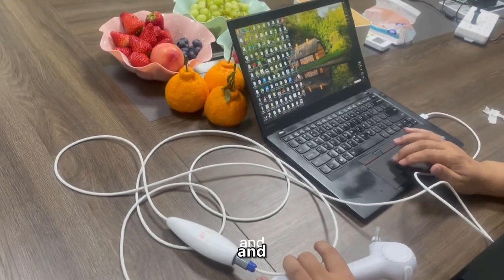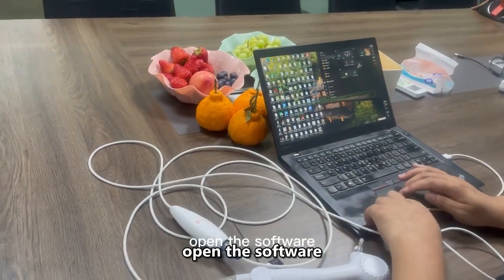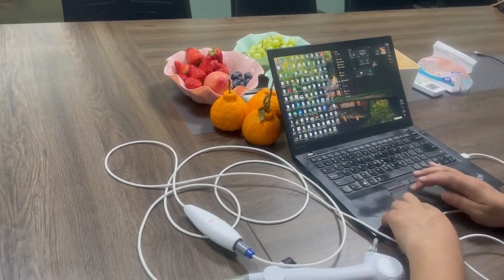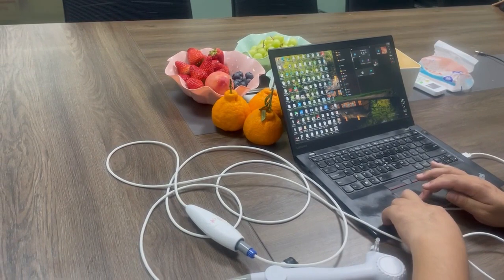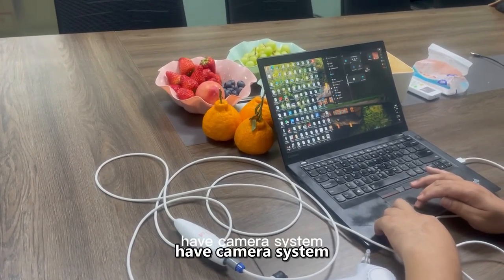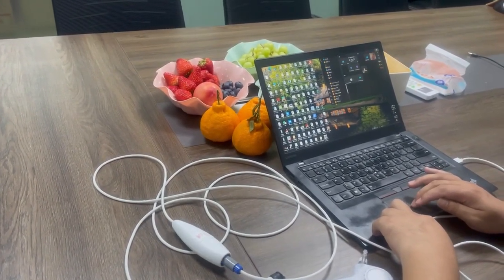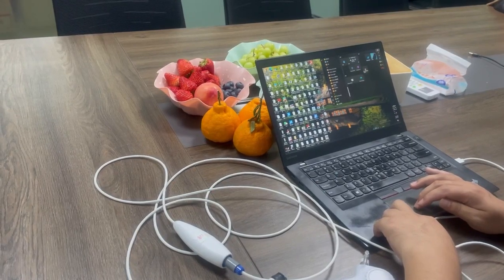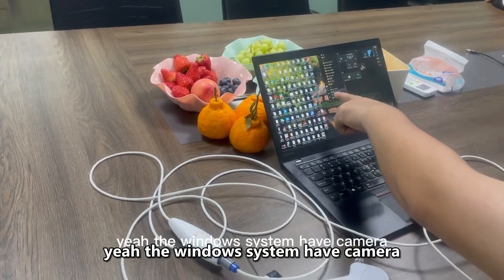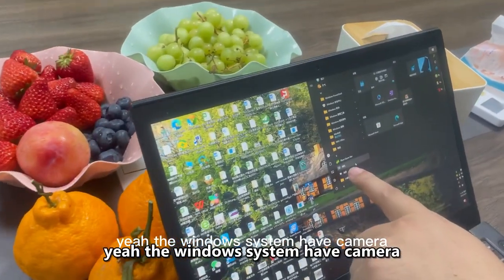Then open the software of the camera. The Windows system has a camera system — here, the Windows system has camera.